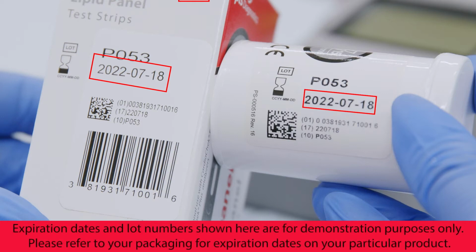Check the expiration dates on both the PTS panel's test strips and the control materials to make sure they have not expired.